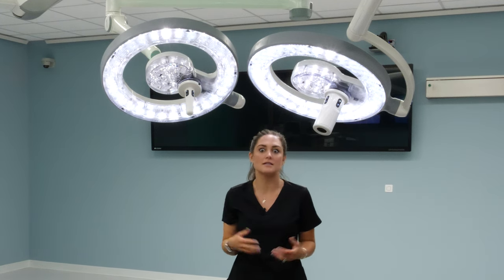To do this, the best way is to shut your lights off, keep holding, flip the light upside down, pull the toggle, and release. To re-insert the camera, you simply line up the portion with the light head. It's easiest with the light upside down so you can provide a little pressure and lock the camera.